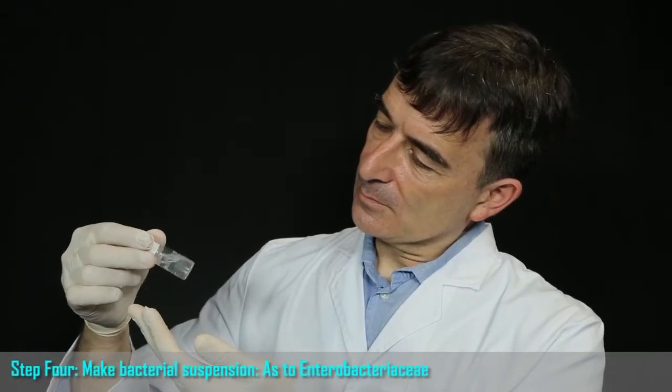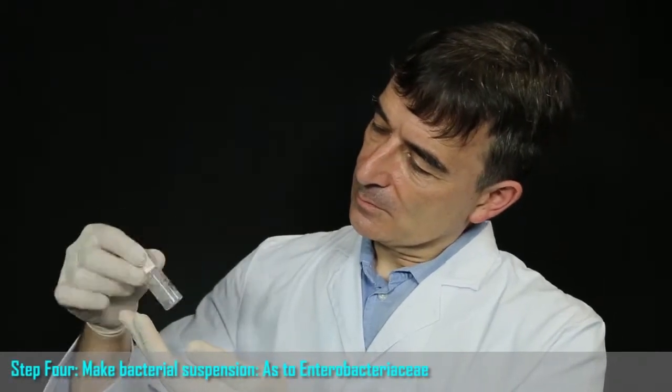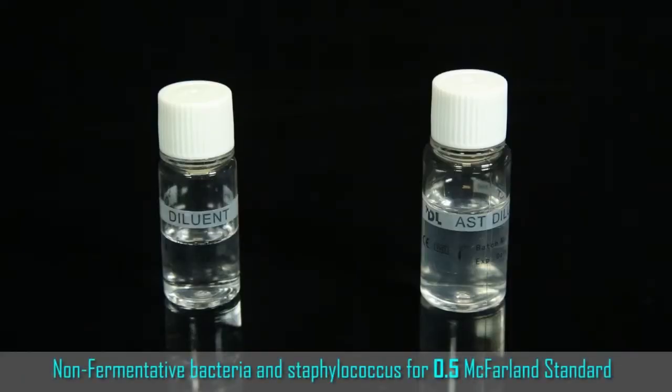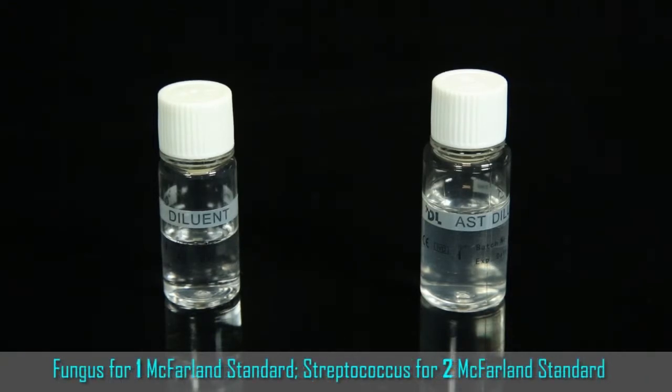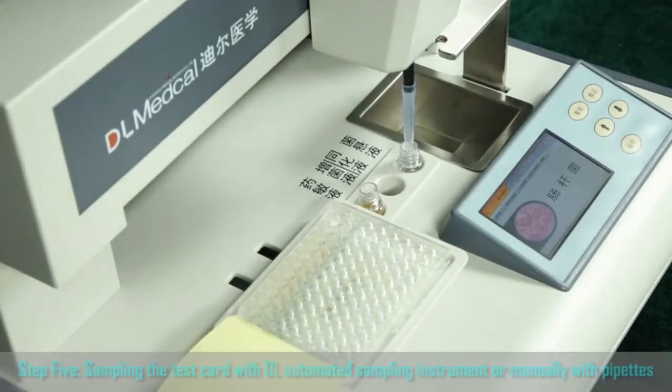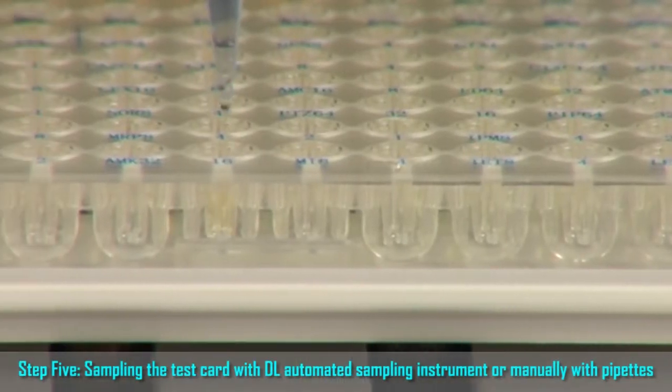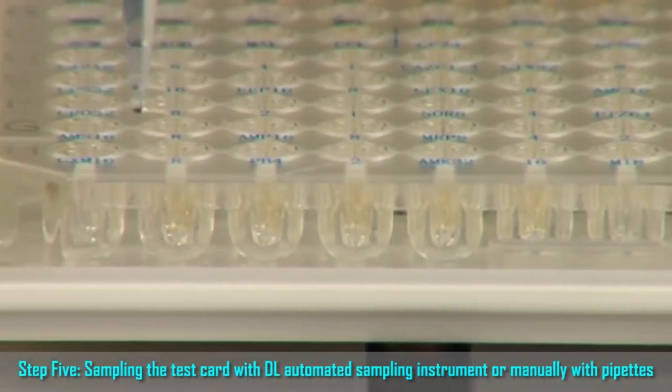Step 4. Make bacterial suspension. For Enterobacteria, non-fermentive bacteria, and staphylococcus, use 0.5 McFarland standard, fungus 1 McFarland standard, streptococcus 2 McFarland standard. Step 5. Sample the test card with the DL automated sampling instrument or manually with pipettes. Add bacterial suspension into the test card well. In the next section, we will show you how to use the test card in a proper way.